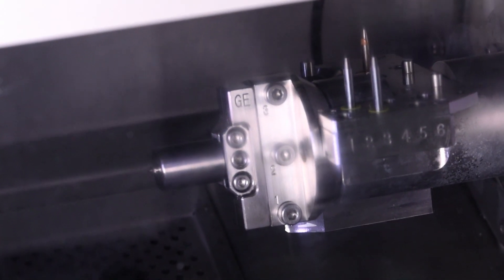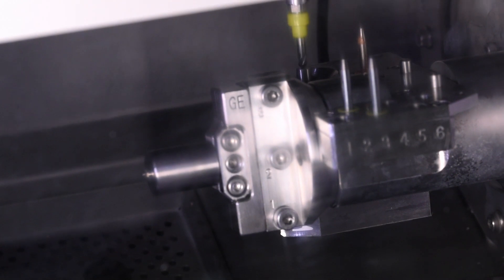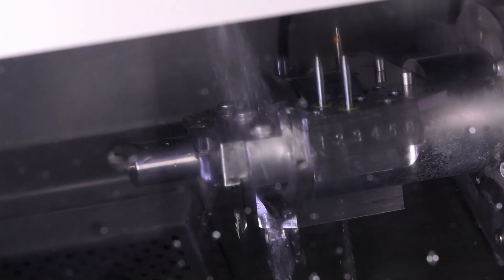Here, you can see the short roughing tool being collected and then its length measured before the coolant starts.